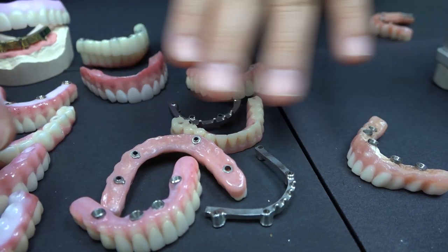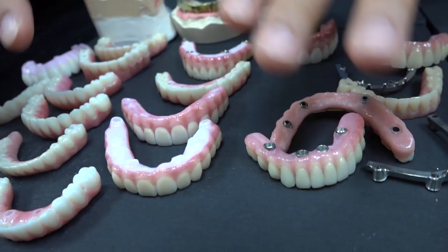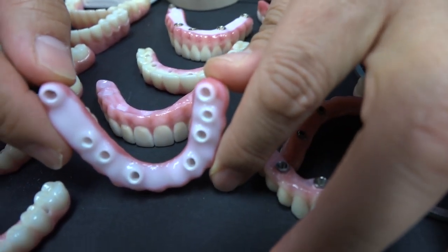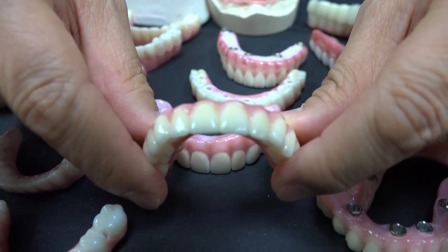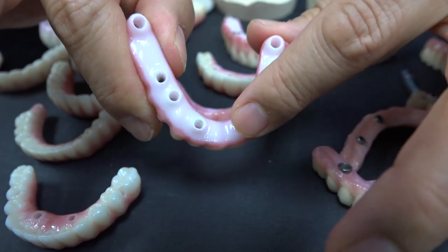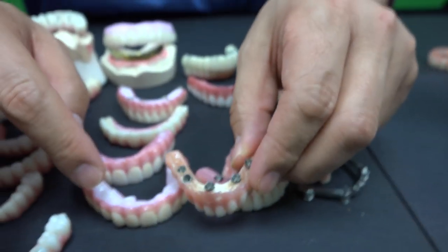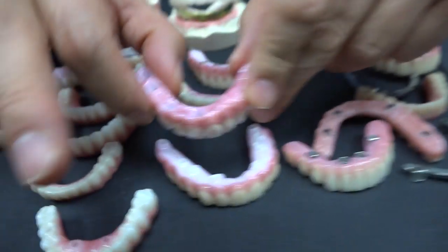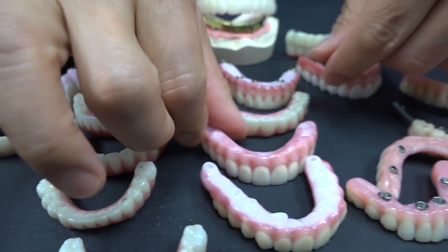When we have a long span case, it's more of a little upgrade version. We call it zirconia. Look at this — a lot of multiple implants placed in, and then this one with the finished restorations. It's a little bit heavier, but you see a little bit better. Definitely better — more plaque resistant than acrylic. This is zirconia. We put the glazing or polish most of the time, and we finish those.